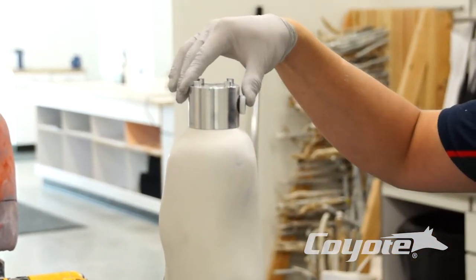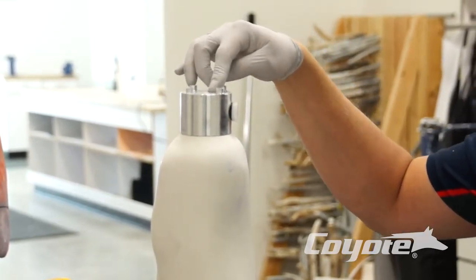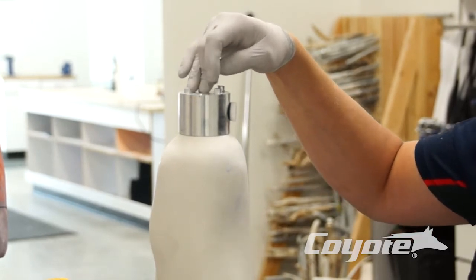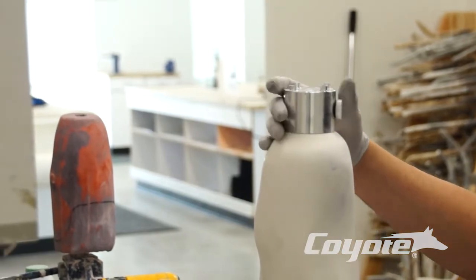Now your tooling dummy is on there, ready to go, ready to fabricate. You can go ahead and we'll get to pulling a test socket over this, and also the version with the bolt through it — mounting that on.